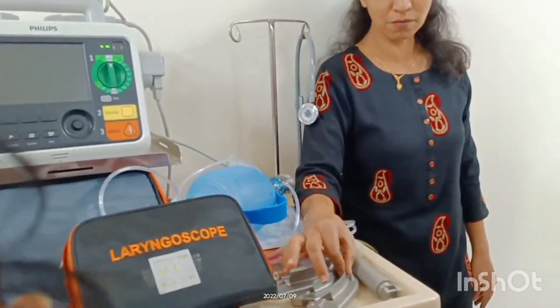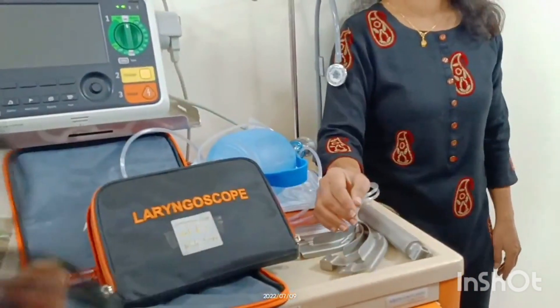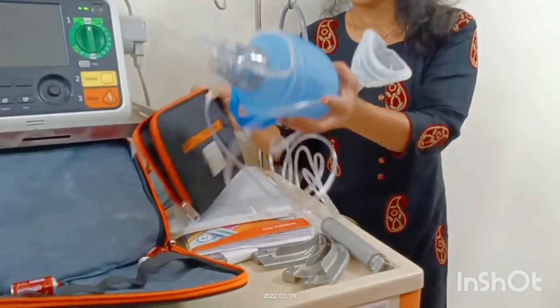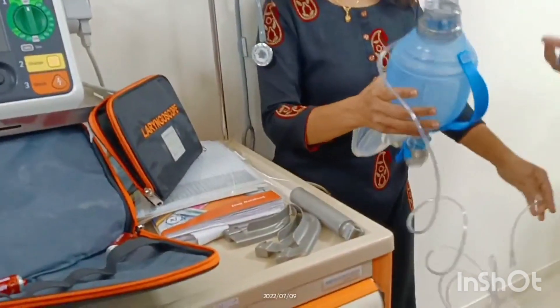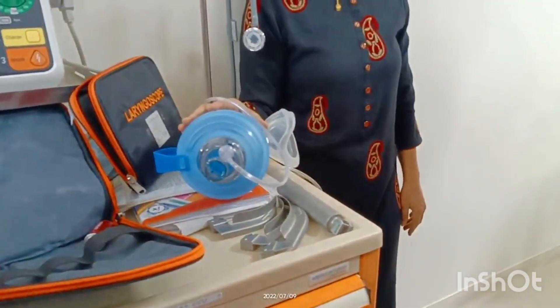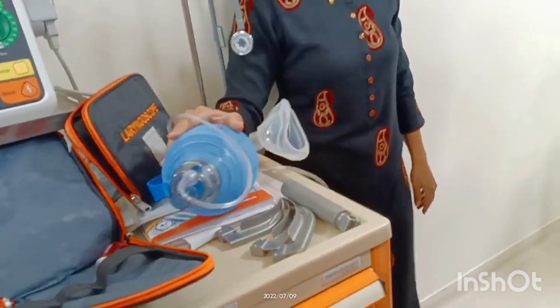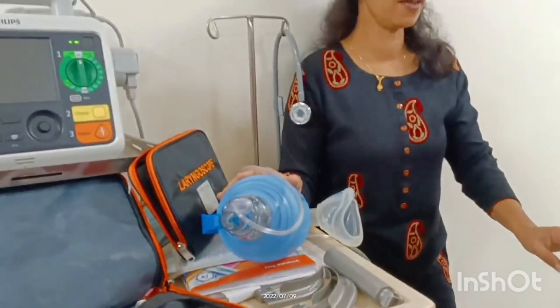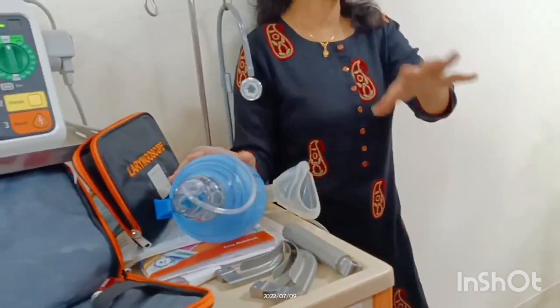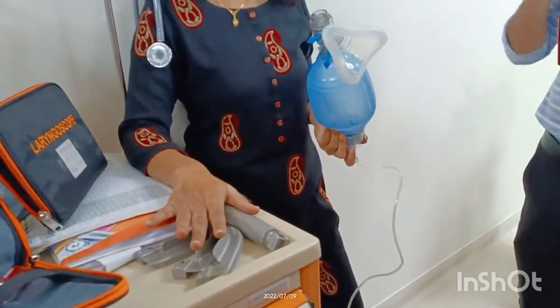What is the laryngoscope? It is used to open the airways and insert the tube. It is used mainly for securing the airway — intubation — because the patient is not breathing. That is why you do intubation, and for intubation the main thing you need is the laryngoscope.